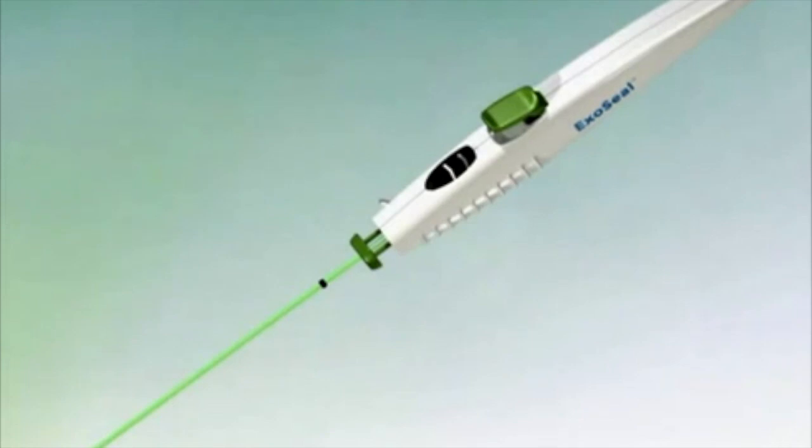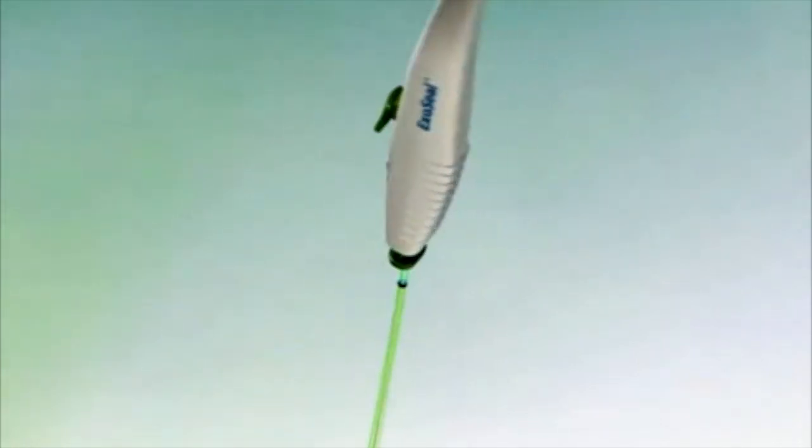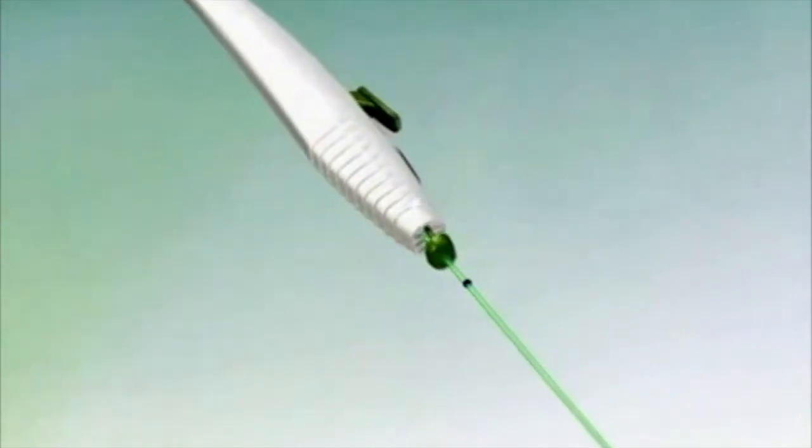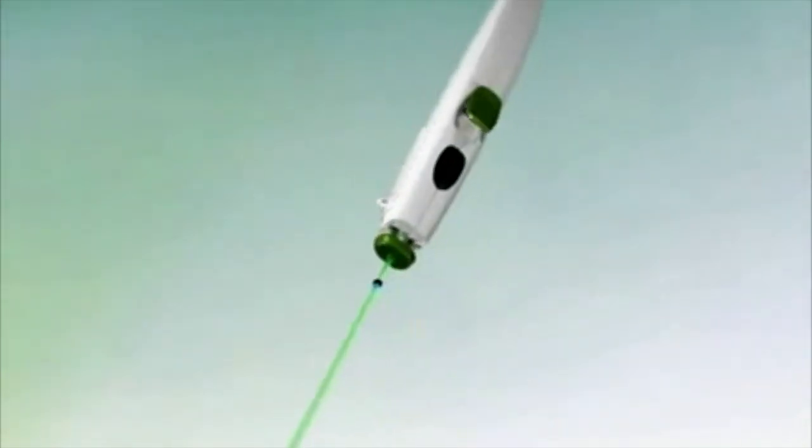and ambulation in patients who have undergone diagnostic or interventional procedures using any standard 5, 6, or 7 French femoral introducer sheath with up to 12 centimeters working length.